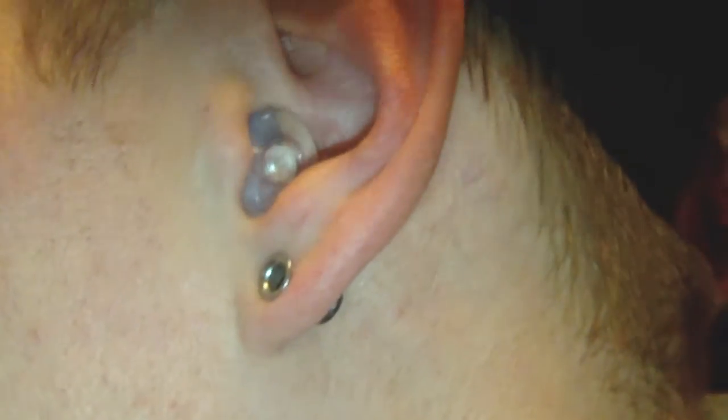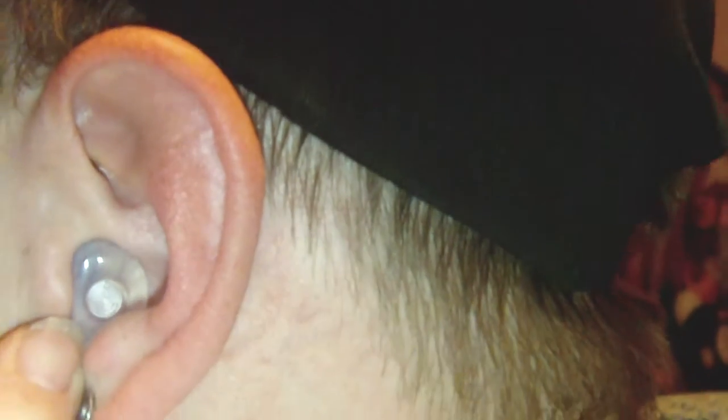ACS custom plugs — can't beat them. At the moment £135 a pair for something that's actually custom molded, medically made for you. You can just see the little filters inside them, and those filters are interchangeable should you feel 17 dB isn't enough — you can take it down to, I think, as far as 21, 25 dB, or 15 dB if you're not in that louder environment. Absolutely fantastic — you all take care and have a good Christmas!